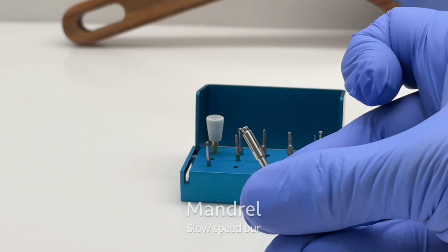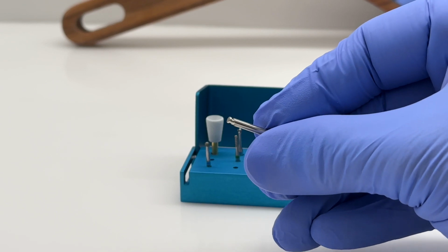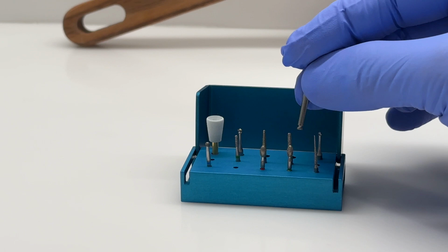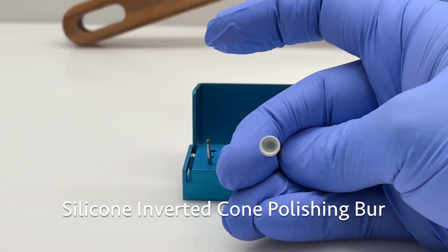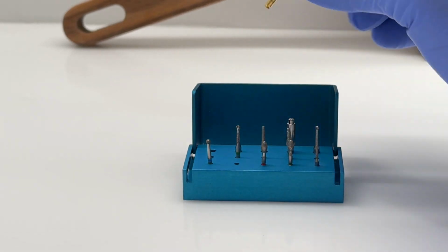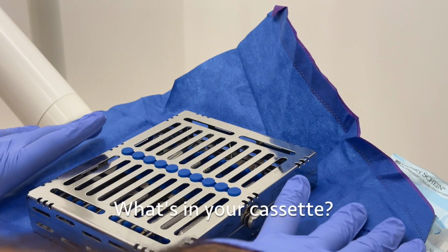This here is the mandrel. This is typically used in conjunction with sanding discs, typical for finishing composite resin restorations. And last, we will show you the silicone inverted cone polishing burr. This is typically used again at the end for a final polishing of the restoration.